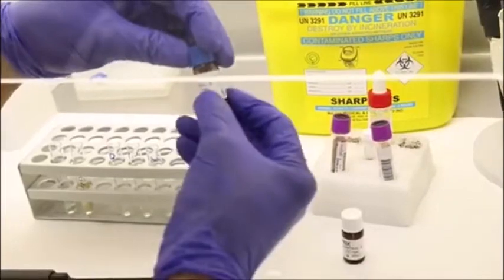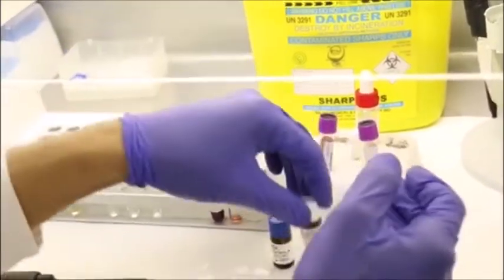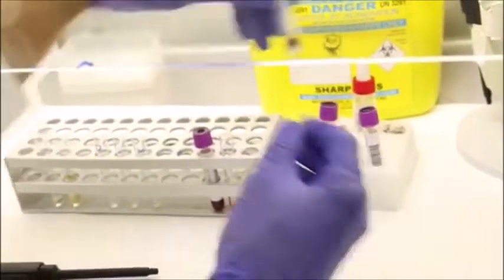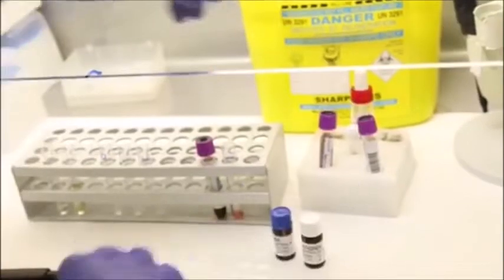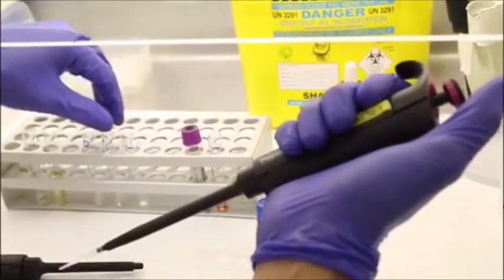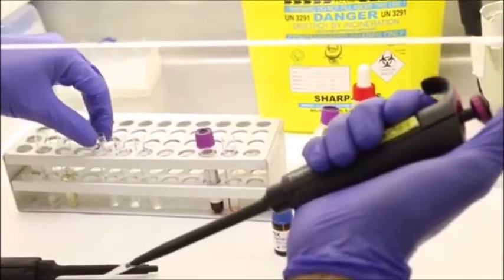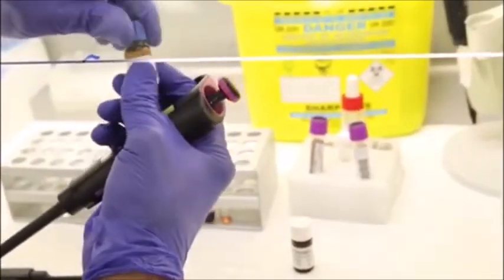Okay, so we have the normal control, the partial deficient control, and the deficient control, which we prepare in-house. Okay, so this is my normal control.